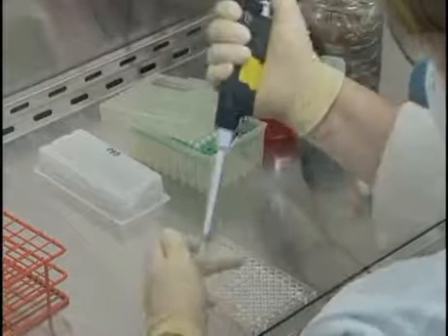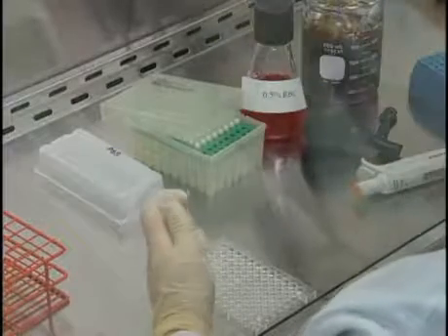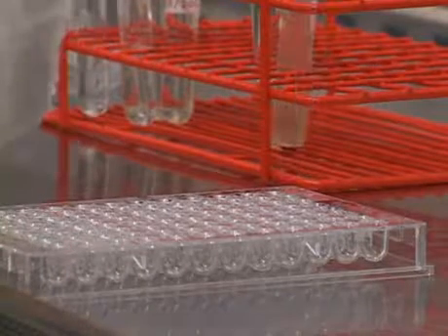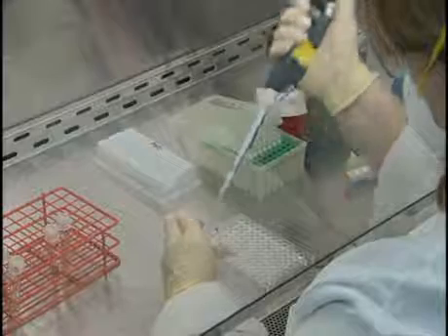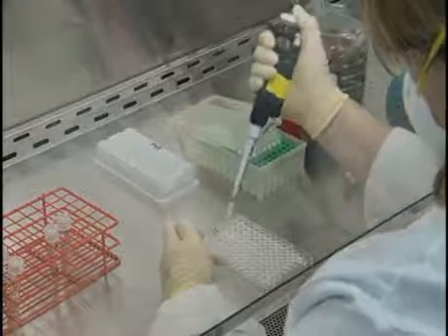The procedure that will be described is somewhat different from that described in the OIE Manual of Diagnostic Tests and Vaccines, but the test has been shown to produce equivalent results. Since most laboratories will not have reagents to identify avian influenza viruses, the procedure described here will be for identification of avian paramyxovirus type 1, or Newcastle disease virus.